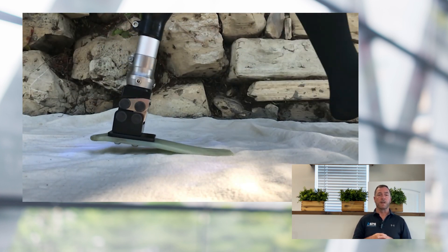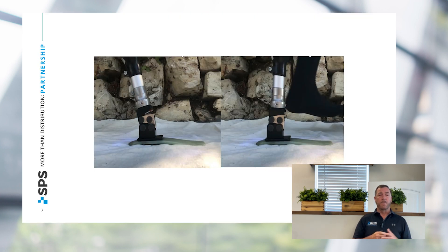And you can see on these slides right here that at early foot flat, if you look at the centric points in the front — the front centrics — you'll see that they actually move slightly anterior, allowing for the body weight to shift anterior over the foot system.